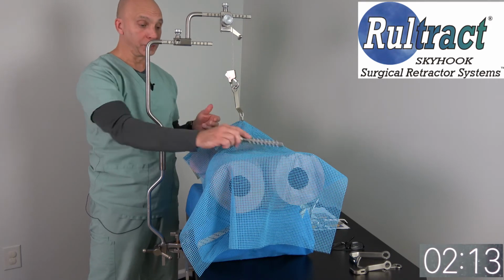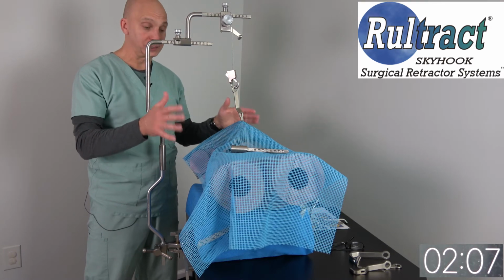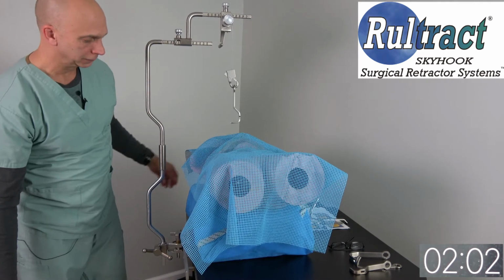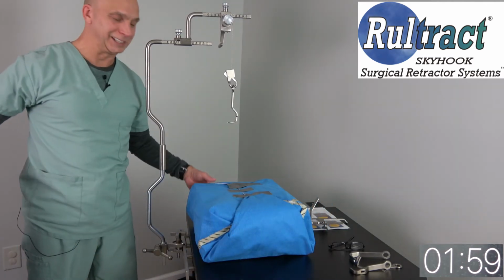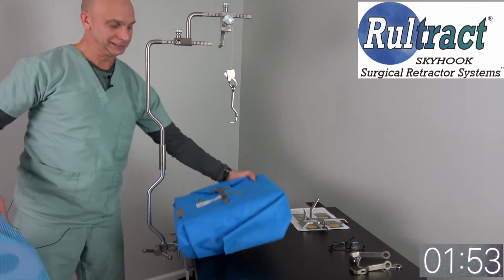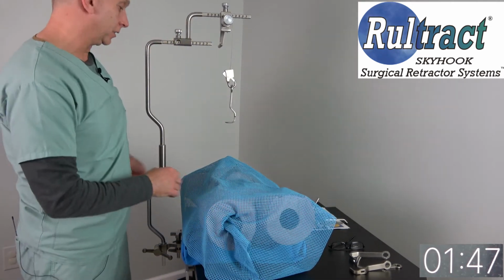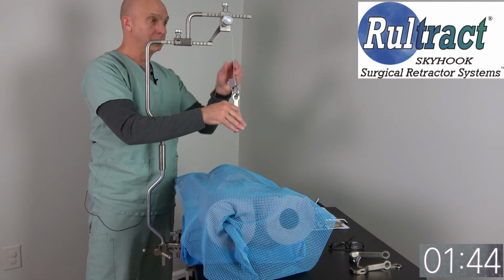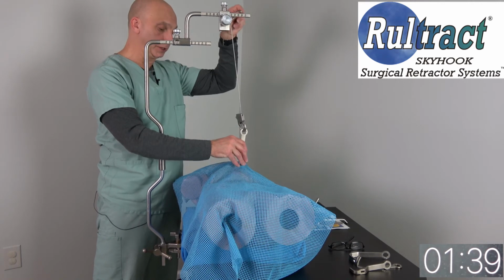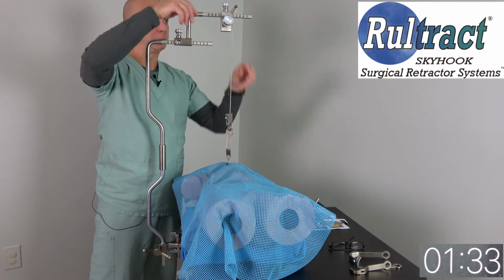Now, of course, you could have both, but I would certainly recommend the riser because it will work for the standard incision as well as the obese. So let me just show you the standard. Working by myself, I kind of have to ad lib. So we go back to the standard size patient. Even with the riser extender bar, we can drop down to the incision, retract that pericardial windows, and have plenty of cable, obviously, to work with. So this riser extender bar is going to work with both patients.